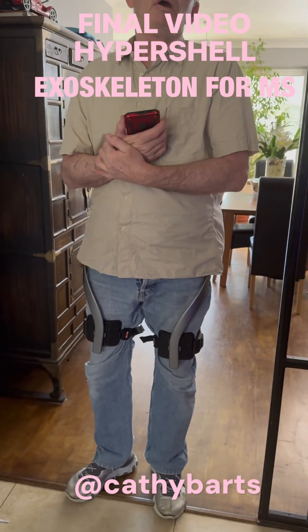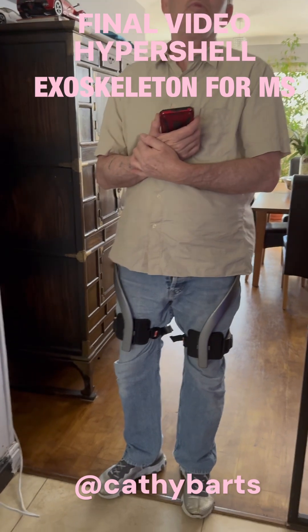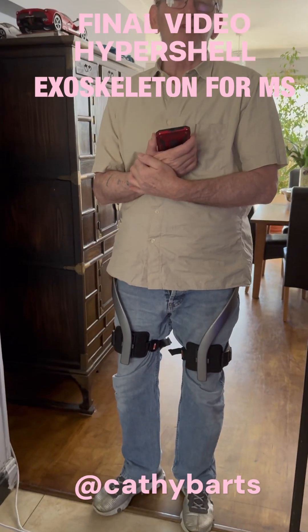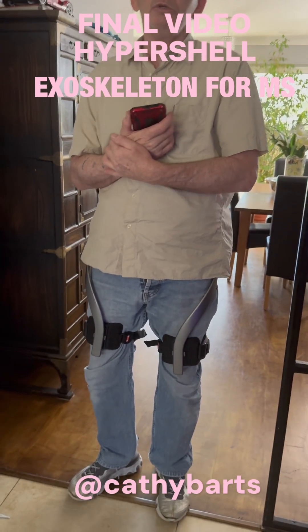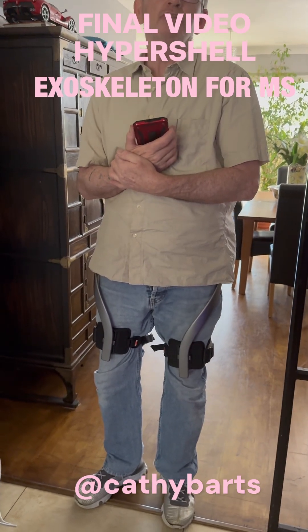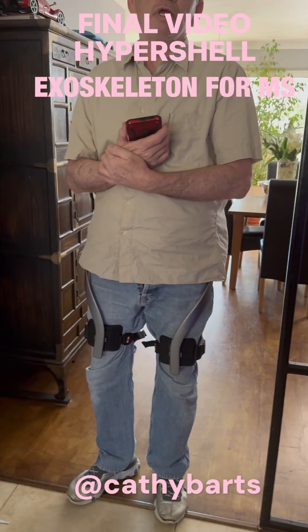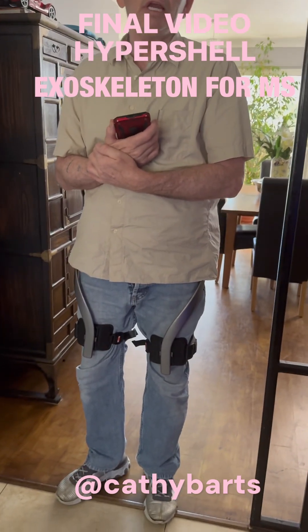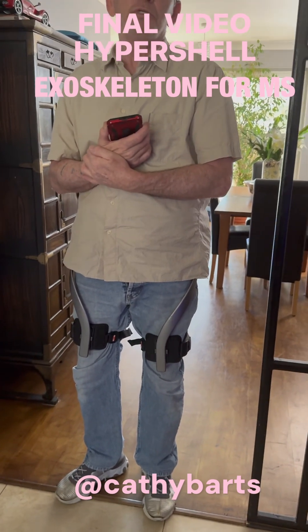Every day I put it on, it's helping me have some form of quality of life. Some days I've no doubt overdone it and caused immense pain — so be under no illusions that you could cause that. I would suggest you start off really slow. You get to know the device, which has got power bands for hill ascent and hill descent — the things that are necessary for people in our position.